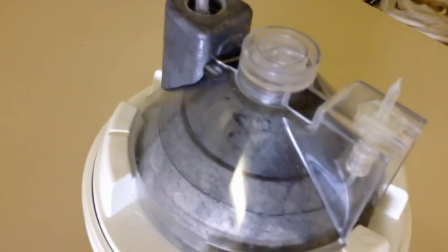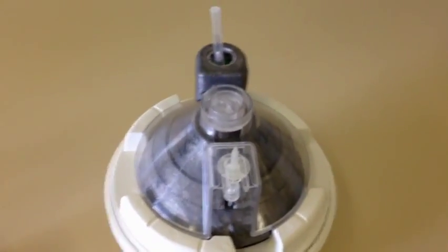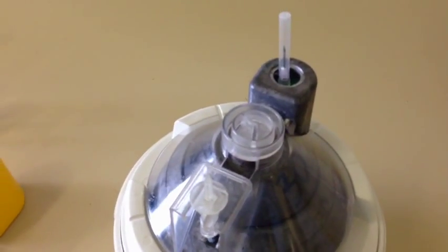You can actually see there's a lead cap that was very similar to the other one that lifts out, a little bit of a plastic coating around it. Again, it's about 22 kilograms, and you've got an inlet and outlet port.